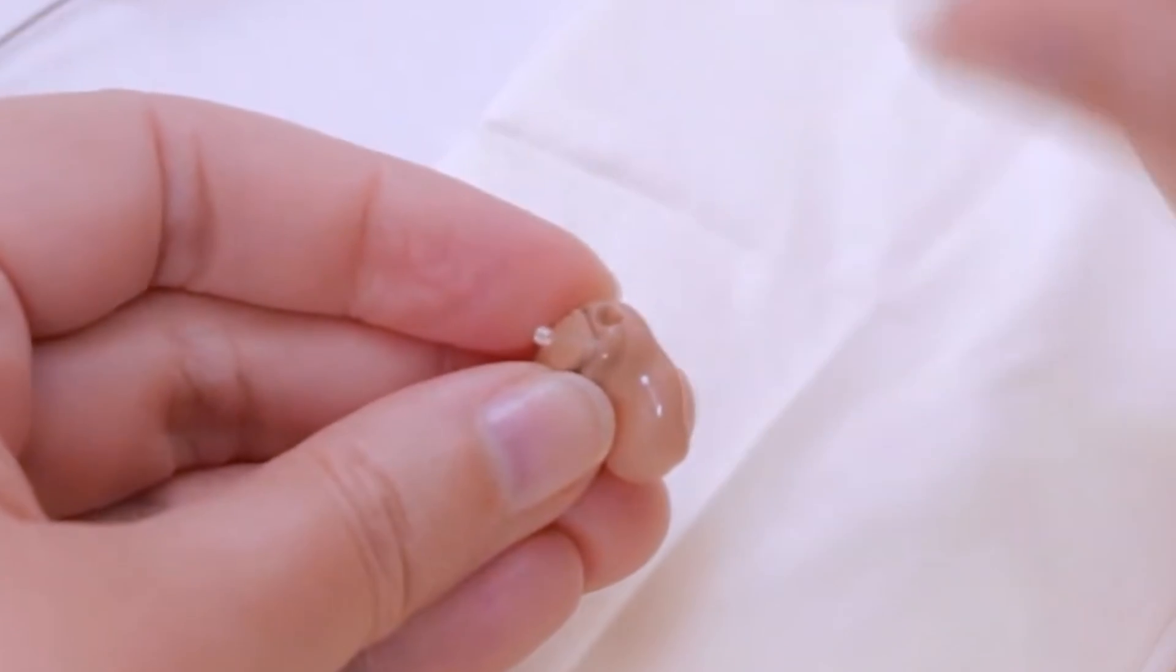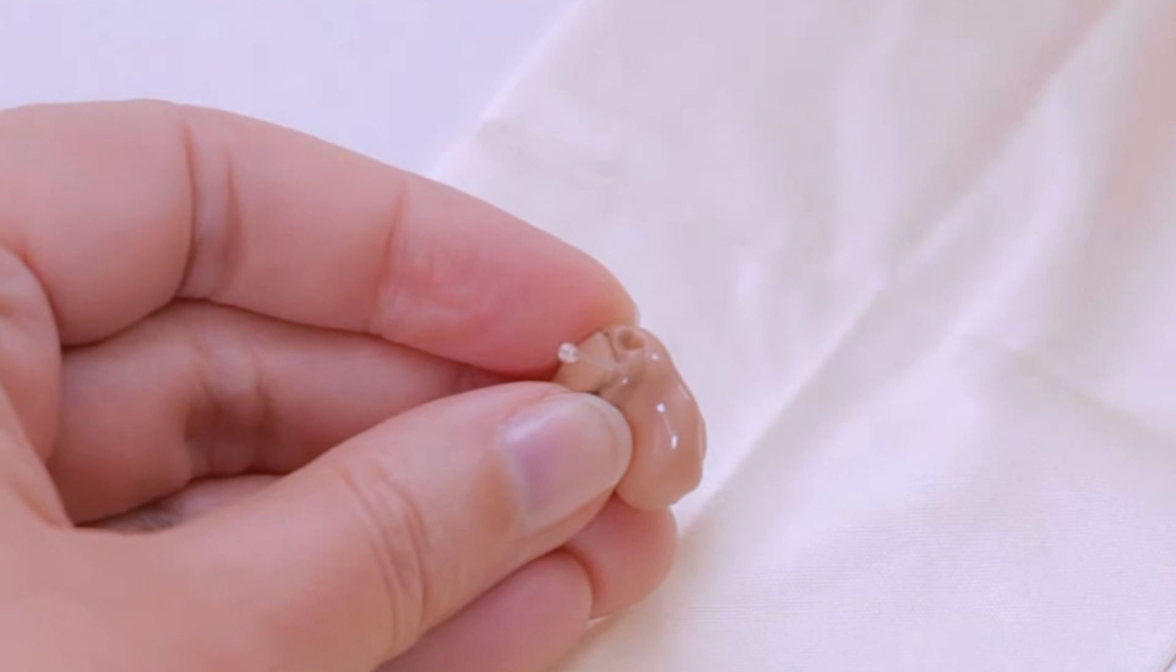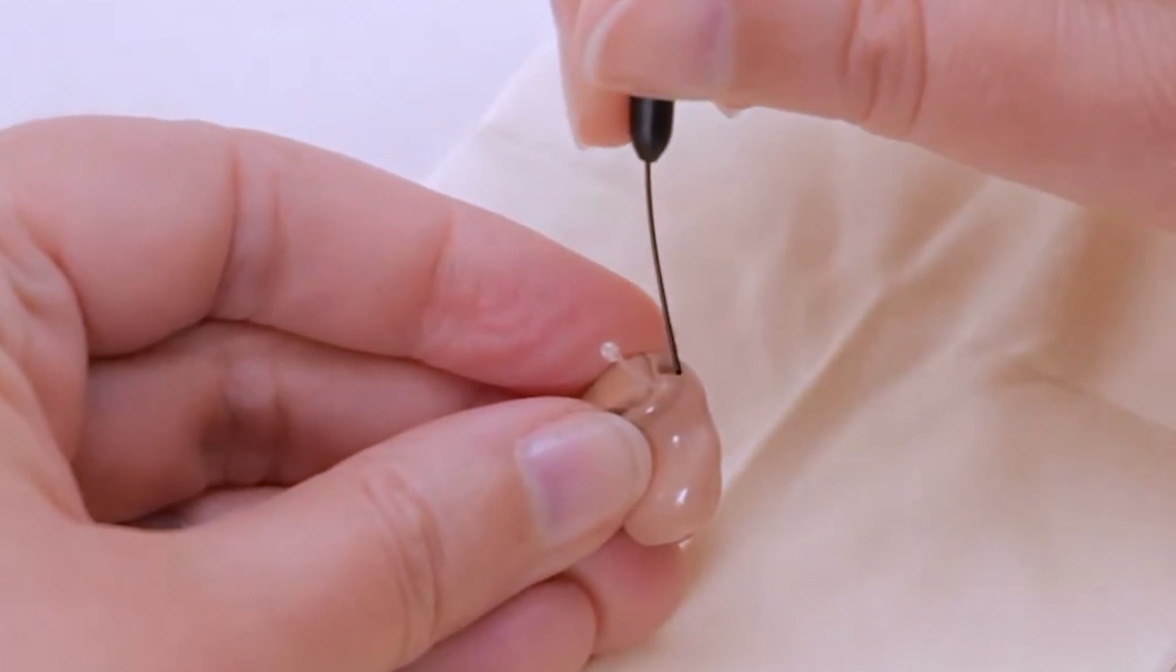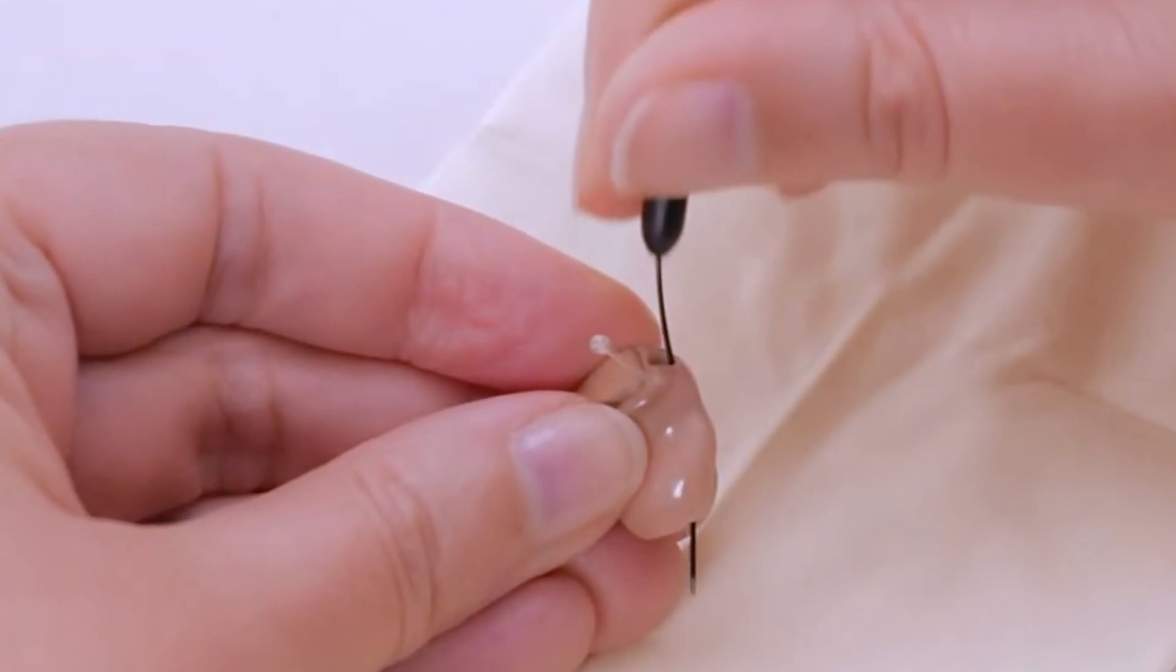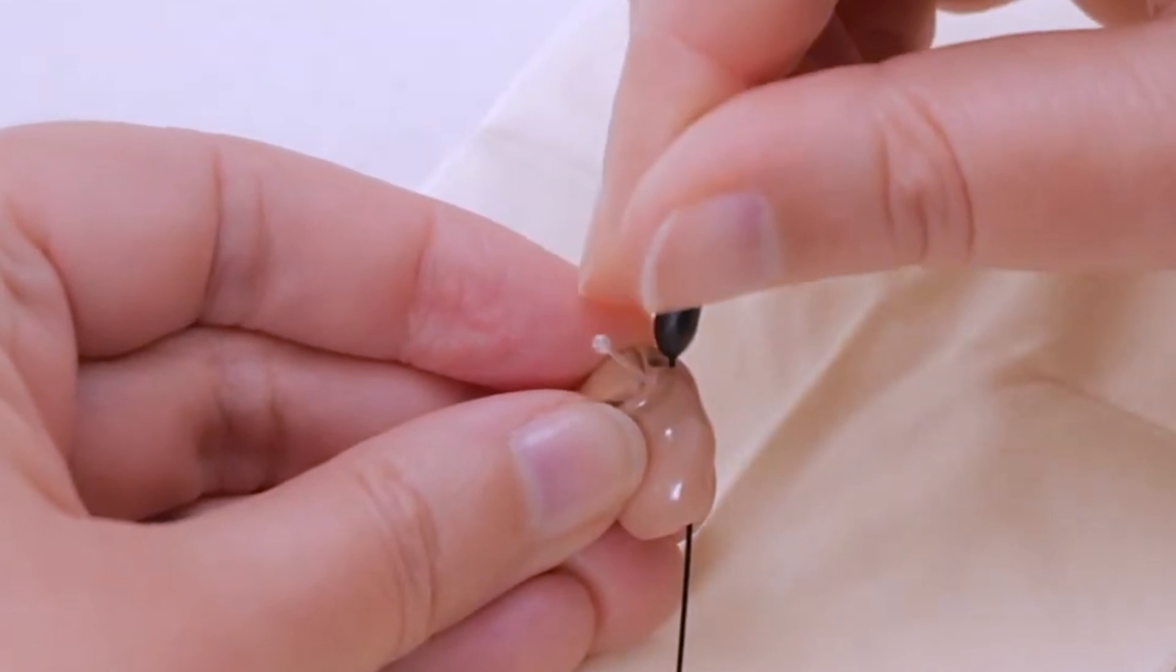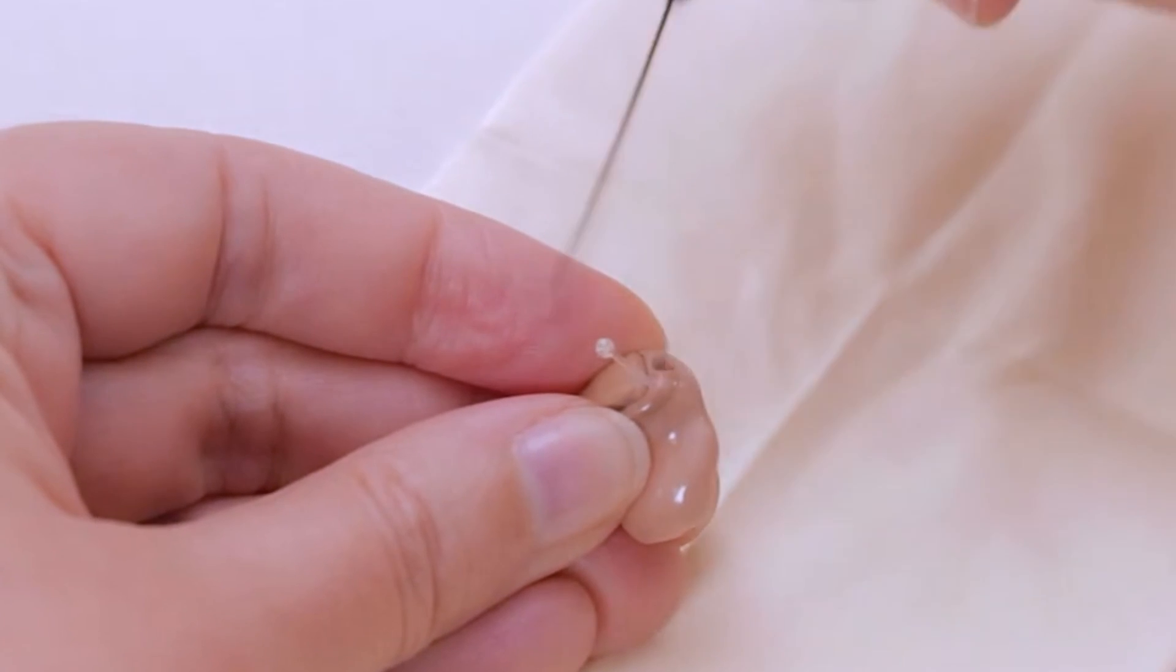The vent tunnel can be more aggressively cleaned with a vent cleaner probe. Simply insert the cleaning probe into the vent opening and have it come out the other end. Any debris within the vent tunnel will be pushed out of the hearing aid vent with this maneuver.